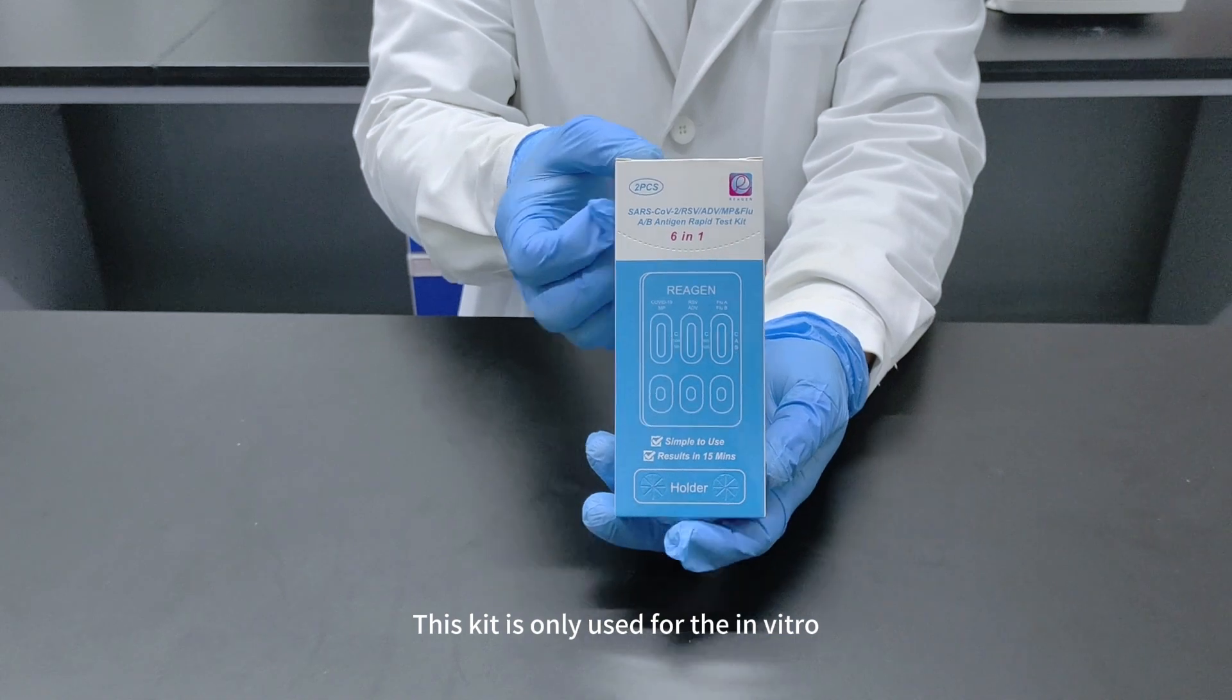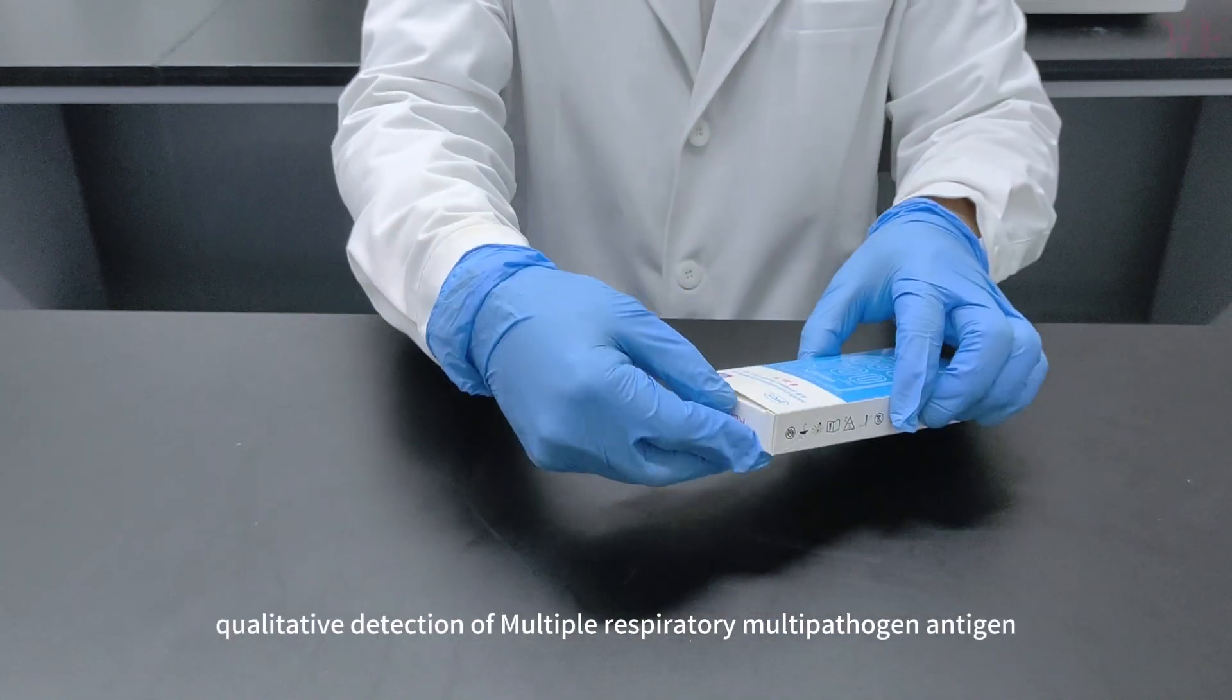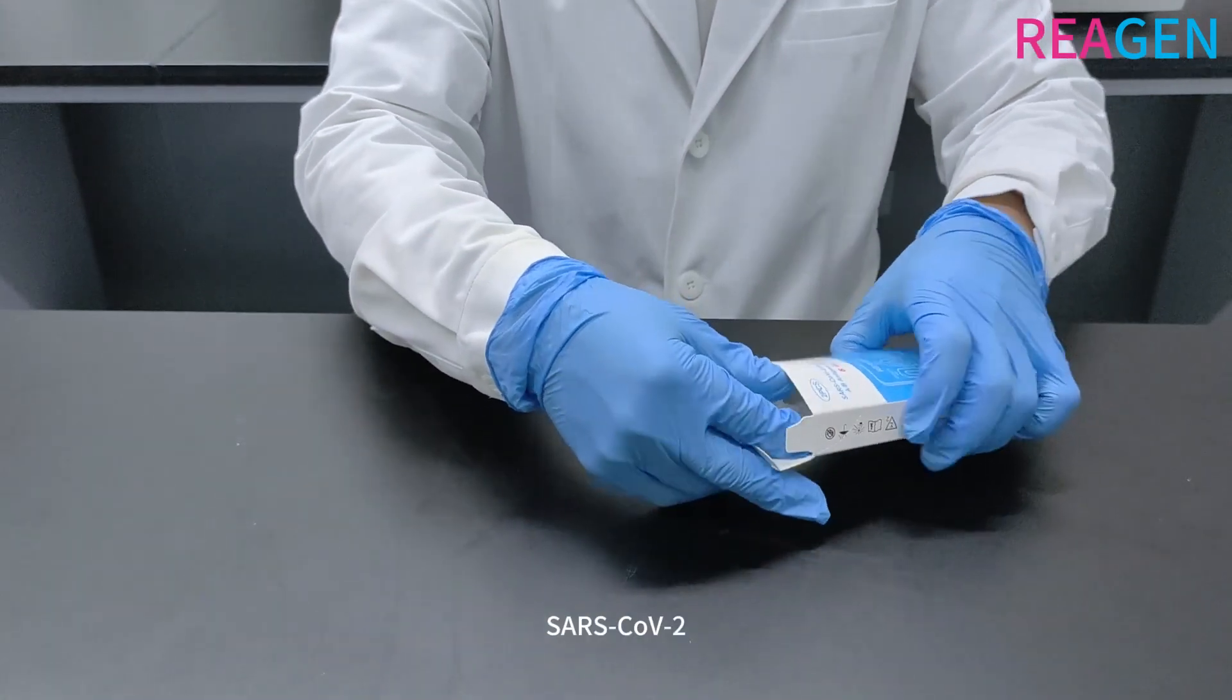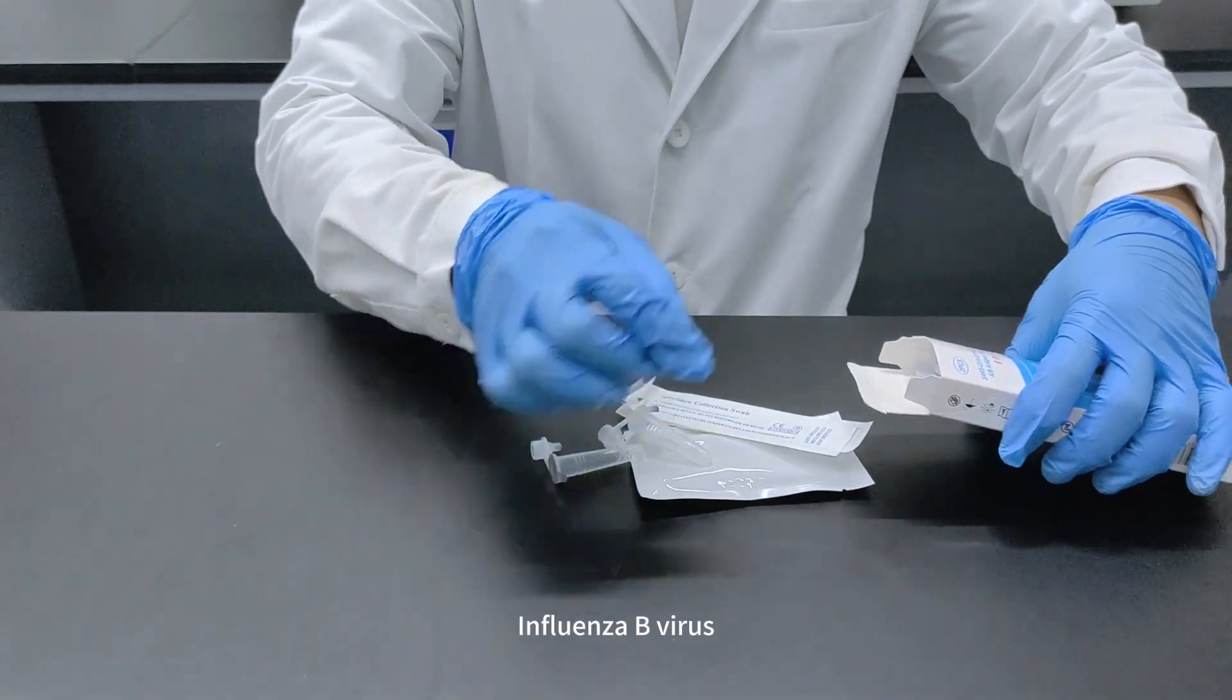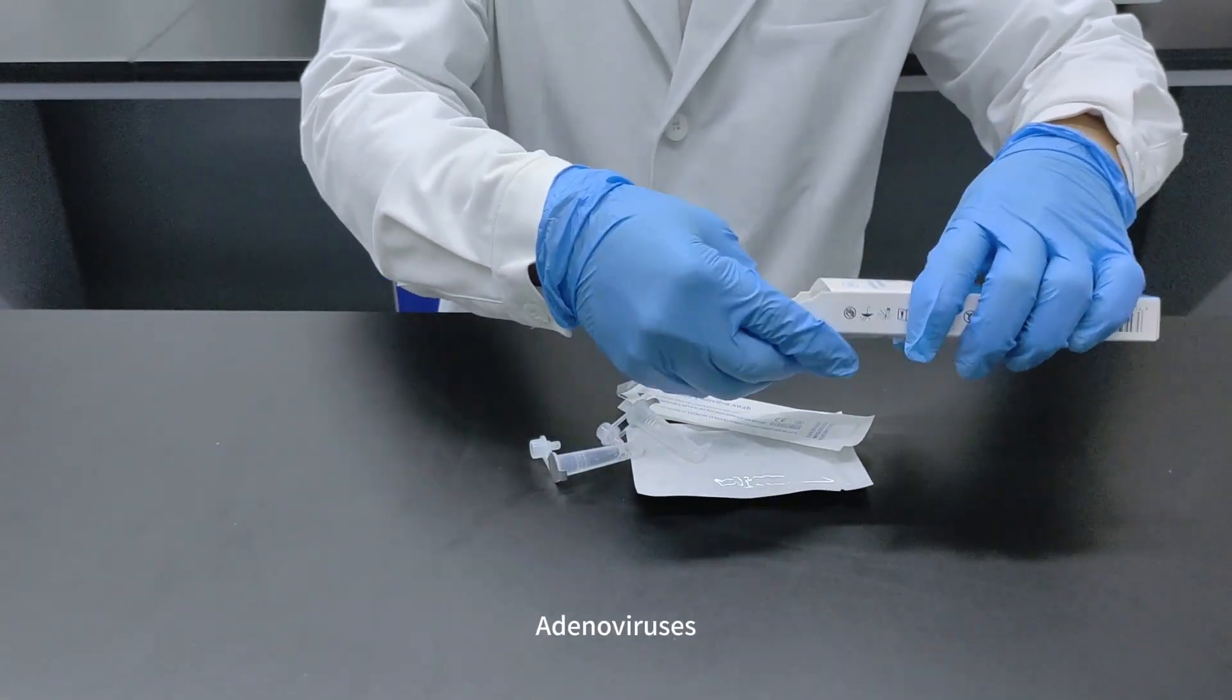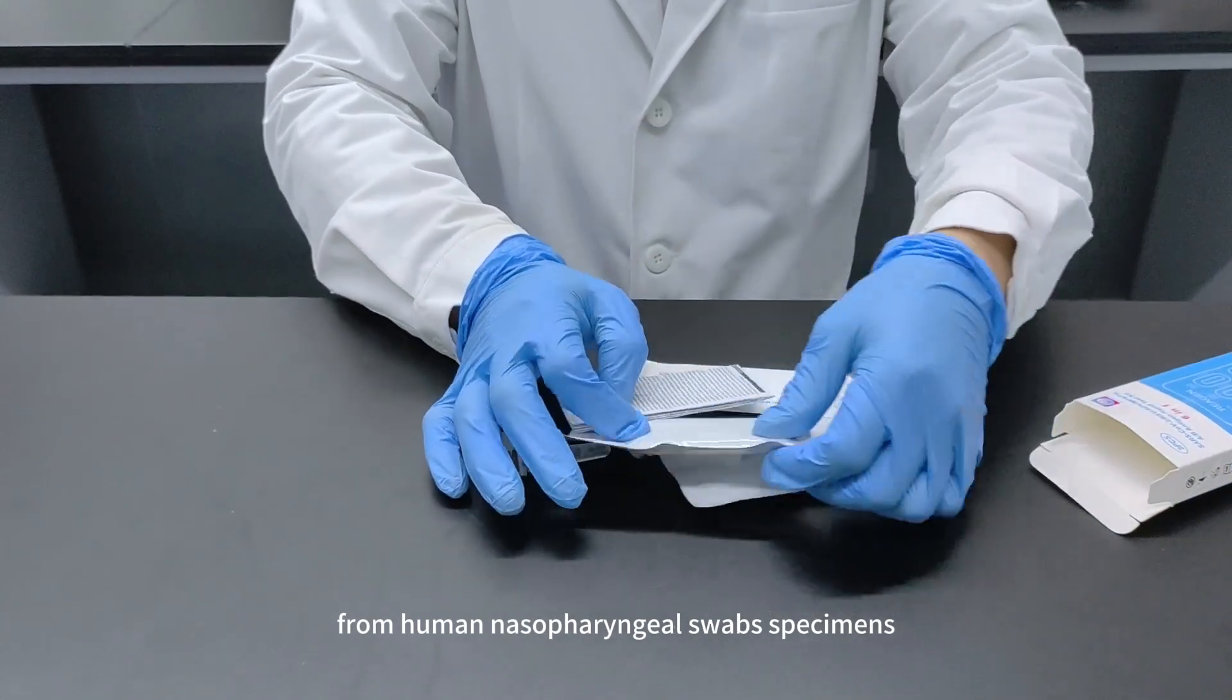This kit is only used for the in vitro qualitative detection of multiple respiratory multi-pathogen antigens: SARS-CoV-2, respiratory syncytial virus, influenza A virus, influenza B virus, adenoviruses, and mycoplasma pneumoniae from human nasopharyngeal swab specimens.